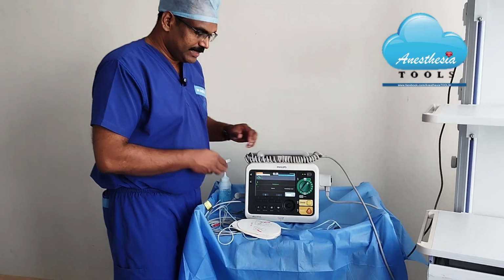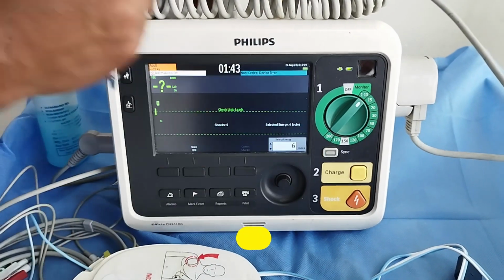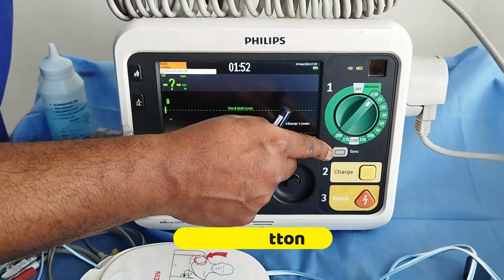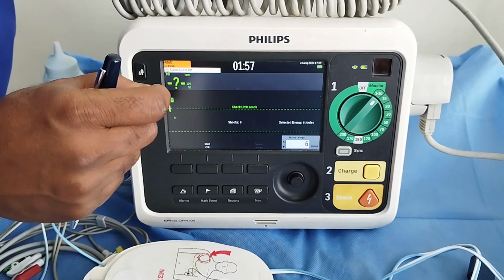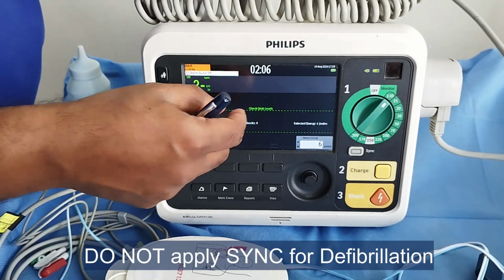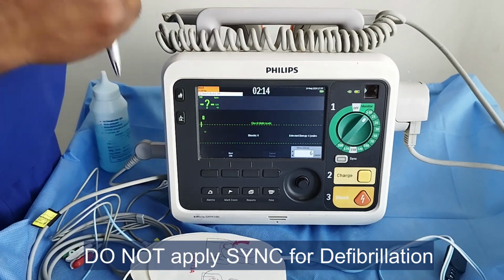Again, coming closer to this machine, apart from the knob to switch on and off, then energy selection, you can see a sync button which is used to facilitate synchronization with the patient's electrocardiogram or cardiac cycle. Important thing is to make sure that the ECG shown in this machine can only be synchronized. So even if you apply discharge button, the energy will be delivered as per the sync function of the machine. This is not applicable when you are going for a defibrillation.